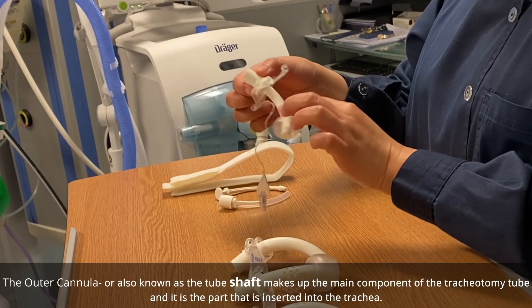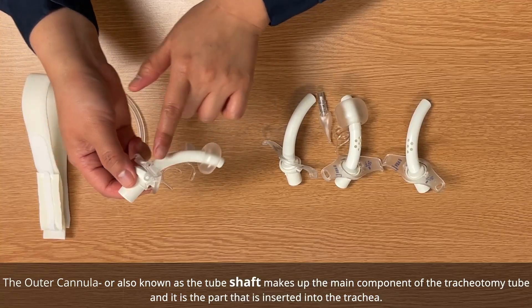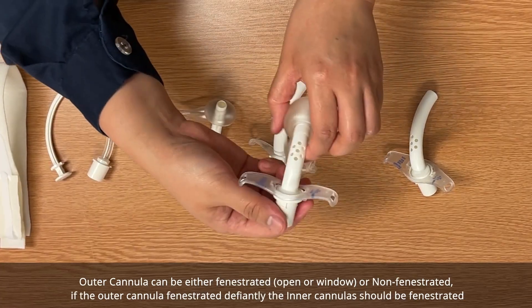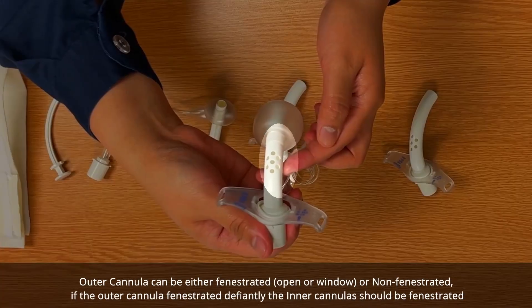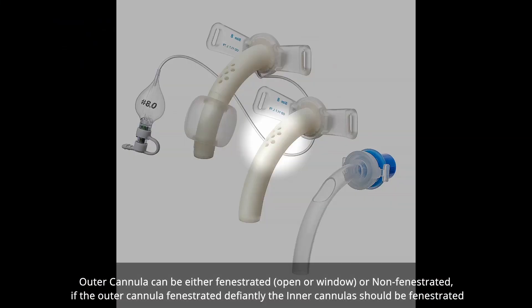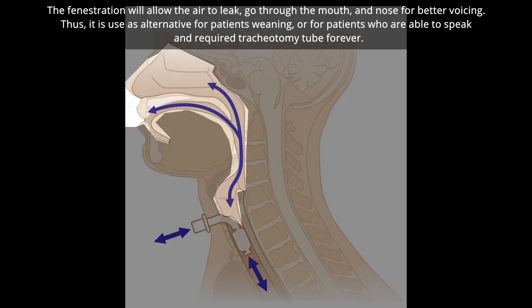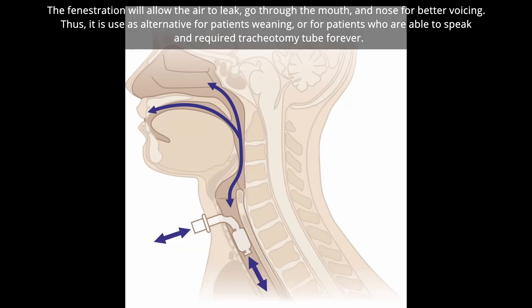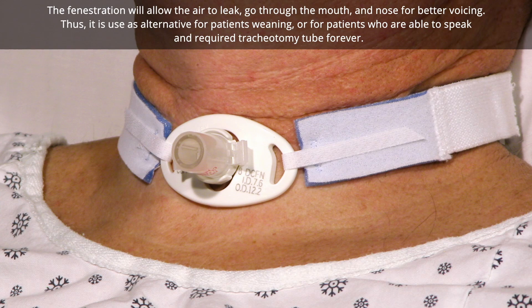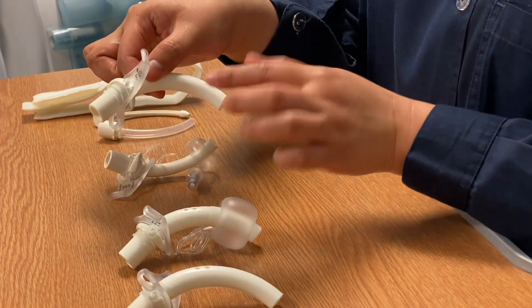The outer cannula, also called the shaft, is the main component of the tracheostomy and is inserted into the trachea. It can be either fenestrated — meaning it has openings or windows — or non-fenestrated with no windows. If the outer cannula is fenestrated, the inner cannula must also be fenestrated. This fenestration allows air to pass through the mouth and nose, enabling the patient to produce voice.